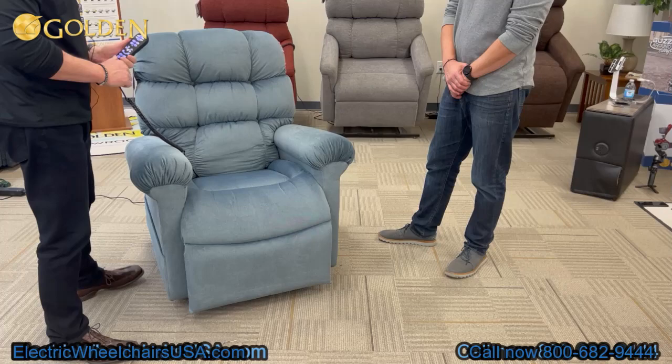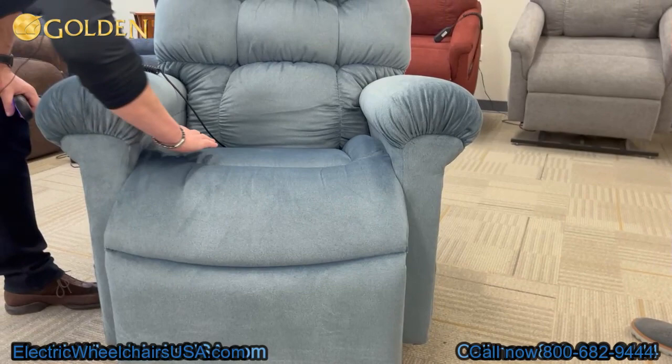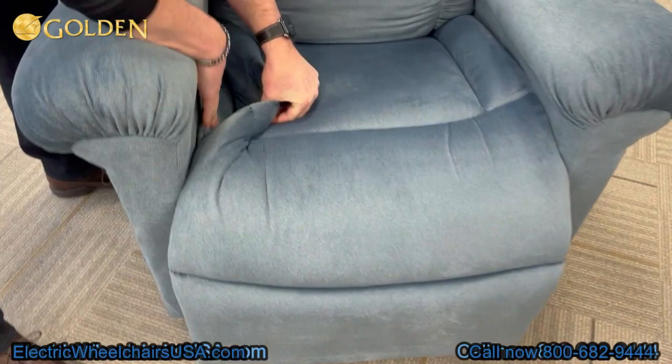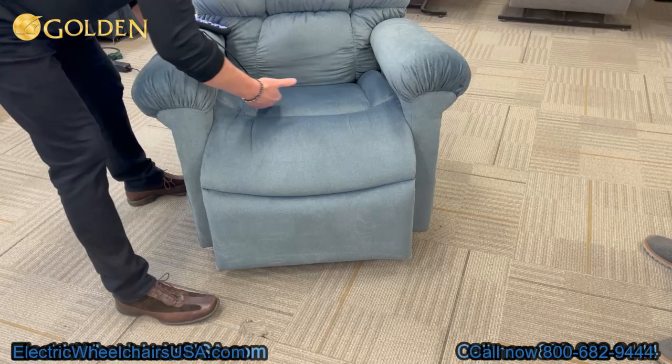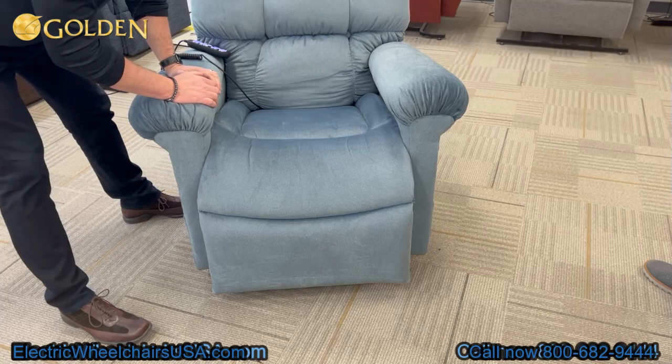The system also has this beautiful chaise lounge, but it's a unique chaise lounge — not like the flat chaise lounges you see out in the field. You can see there are bolsters on either side. When you pick up the side, you can see there's angled foam beneath the chaise lounge. That angled foam pushes the sides of the chair to the center, and the center is suspended over springs. So when you apply weight, the seat wraps itself around your hips and gives you lateral support for proper posture.